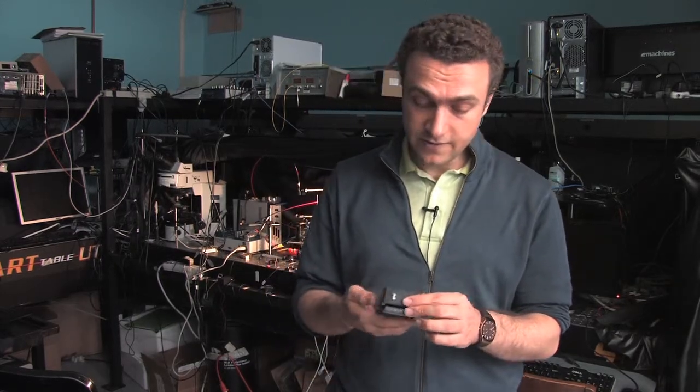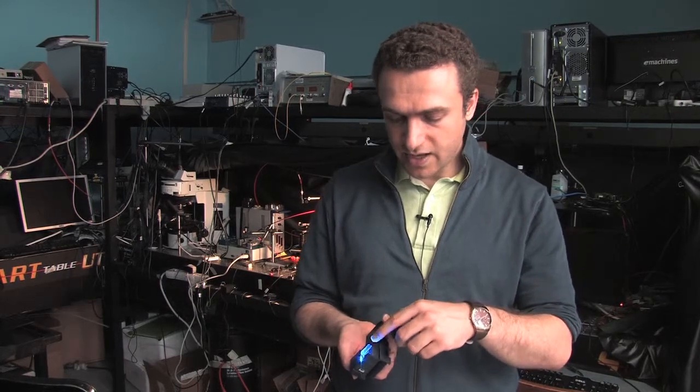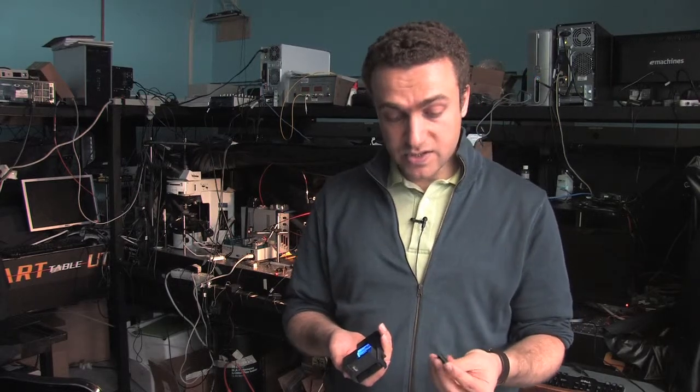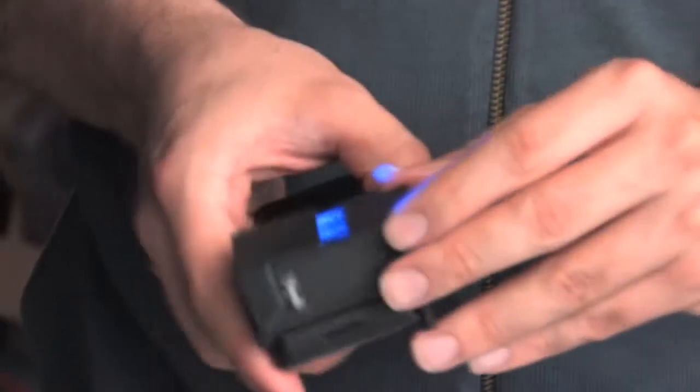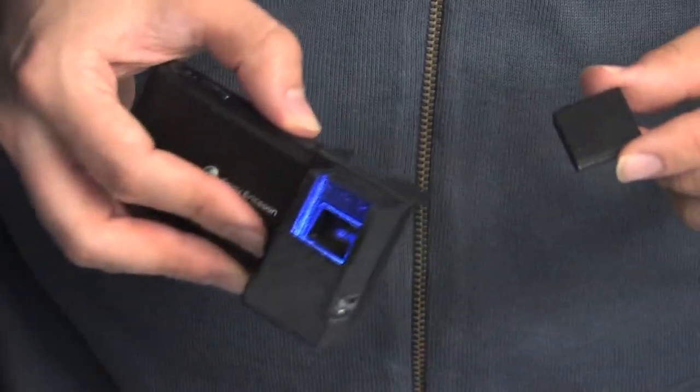This attachment converts the cell phone camera into a fluorescent microscope that is an extremely wide field of view device. In this case we have some light emitting diodes put together, very inexpensive components indeed powered through a battery. And this is where you load your specimen. Once it goes in, the specimen actually acts like a multimode waveguide.